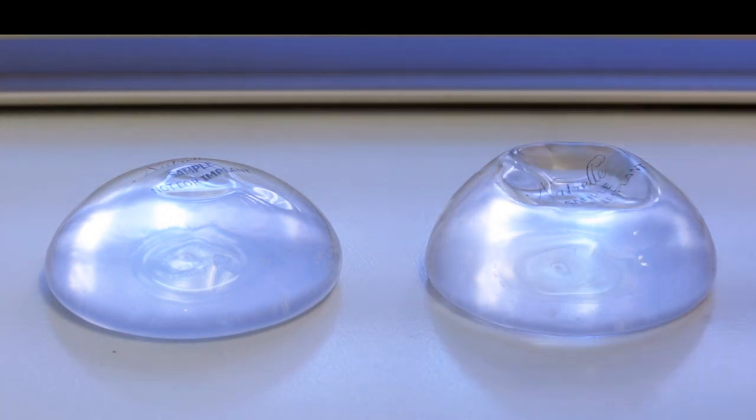In any case, the new Inspira is a very exciting implant that we're very happy to have in our range of implant choices, and I think it leads just to one more option in terms of being able to customize and get the best possible result.